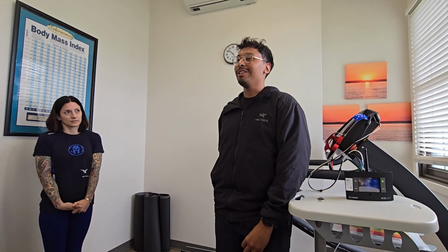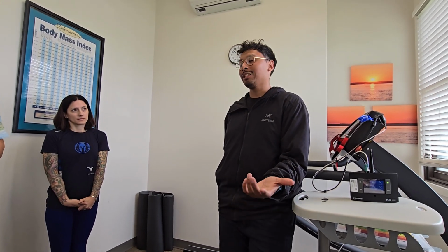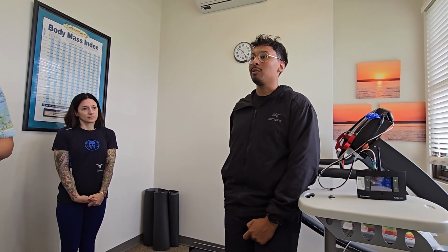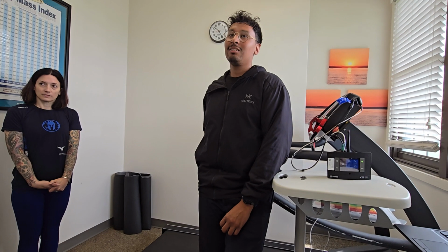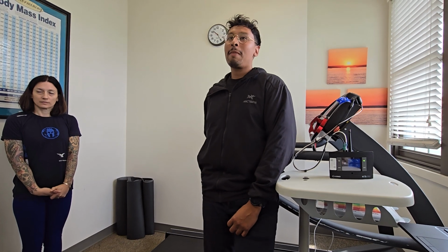I guess there's not really a way to tell beforehand if that person is going to be running at those rates, right? It's kind of just after the test you would know, like, hey, from now on I should switch to the mixing chamber for this person. Unless you know that you're going to be testing someone who's a really good runner. If we test someone we've already tested before, is there a certain VO2 we should look for?